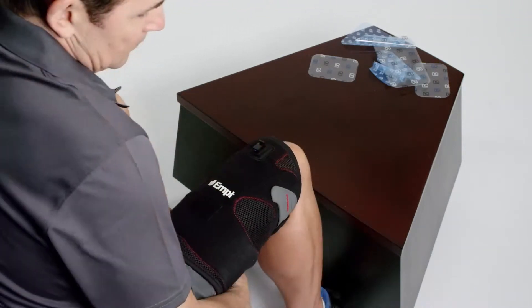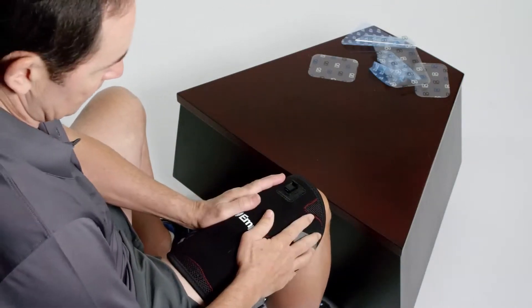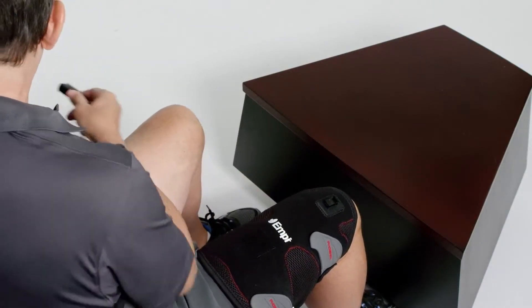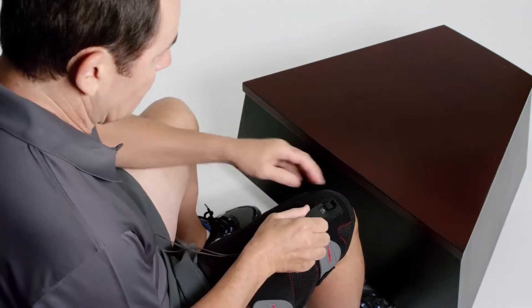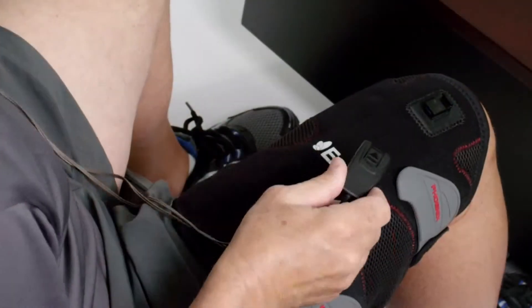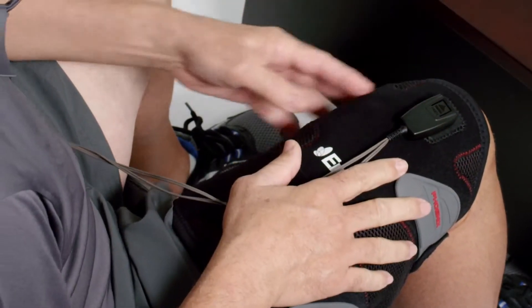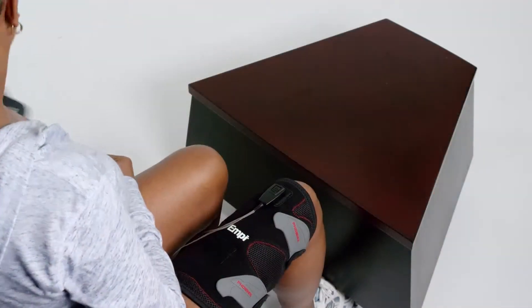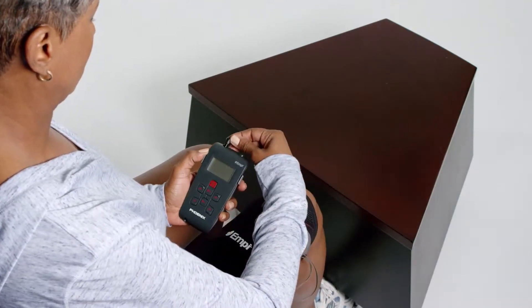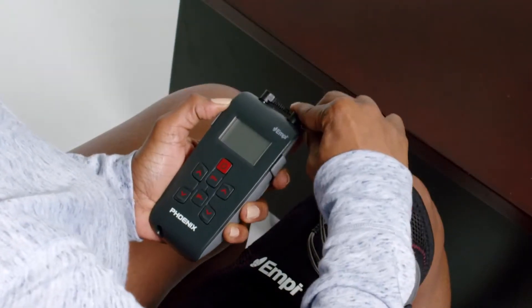Once the garment is in the proper place, press down gently on the garment to ensure that the electrodes adhere to your skin. Take the straps and wrap them around the underside of your thigh to secure the garment snugly. Now that the garment is in place, you can connect the device. Take the connector wire that came with the garment and insert the plastic end into the port on the garment. The plastic end should slide into place and click when it is fully engaged. Connect the conductive garment to your device by pressing the plugs on the lead wire into the ports on top of the device. Press down to ensure that the plug is inserted all the way.